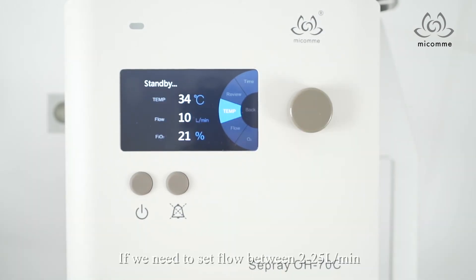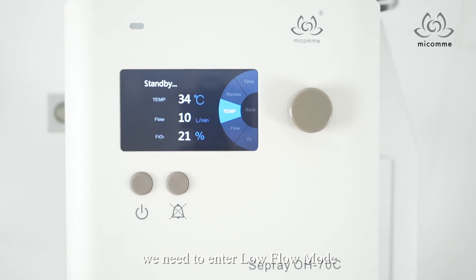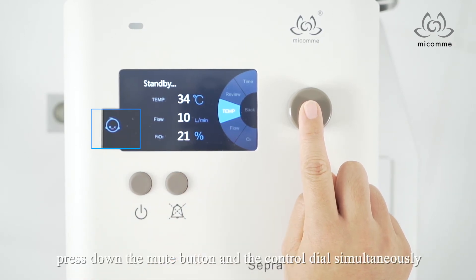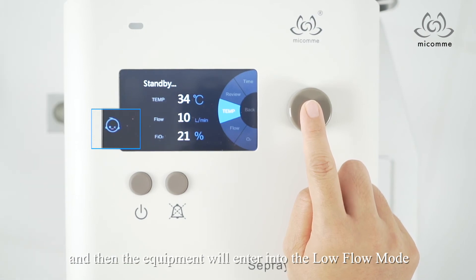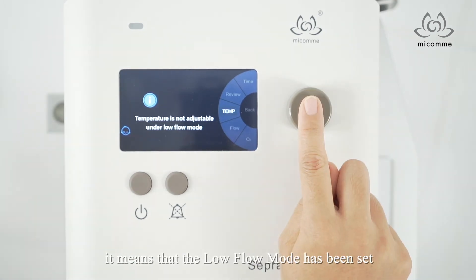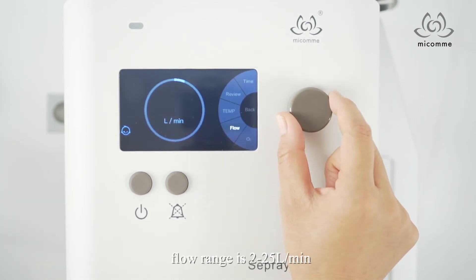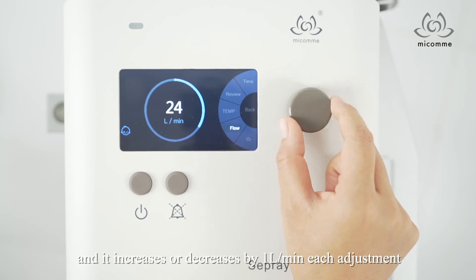If we need to set a flow between 2 and 25 liters per minute, we need to enter low flow mode. In the high flow mode, exit the settings interface. Press down the mute button and the knob simultaneously, and then the equipment will enter into the low flow mode. When the child face sign lights up on the interface, it means that the low flow mode has been set. In this mode, temperature is locked at 34°C, flow range is 2 to 25 liters per minute, and it increases or decreases by 1 liter per minute each adjustment.